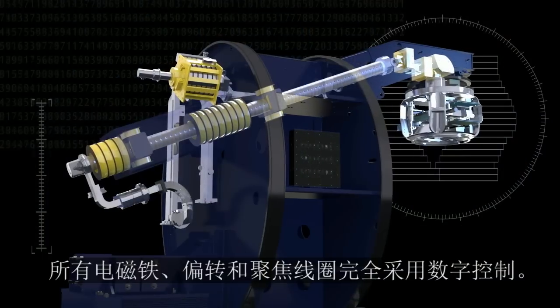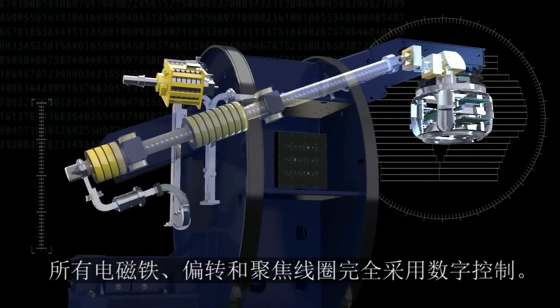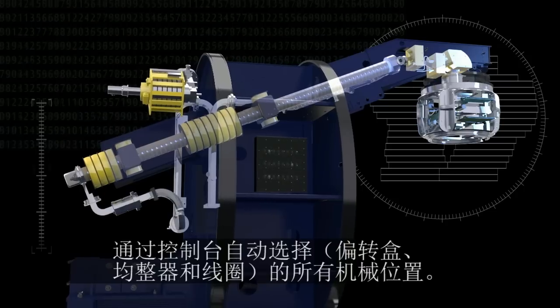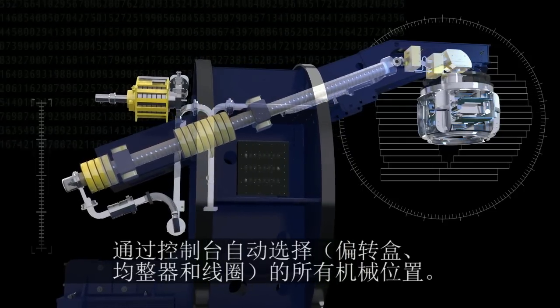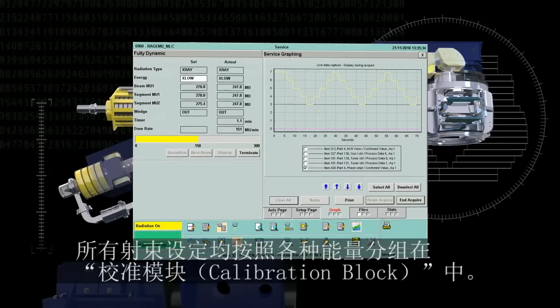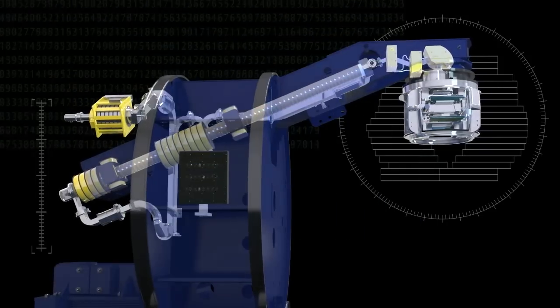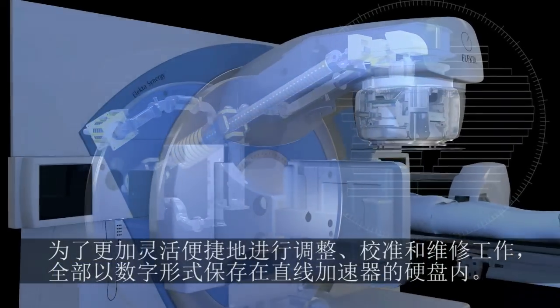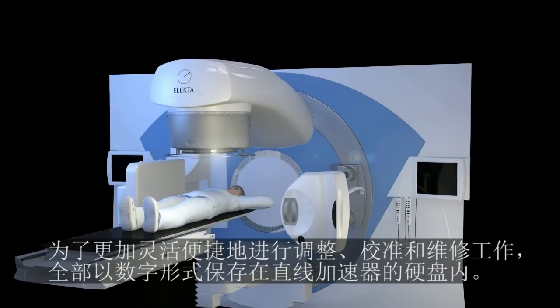All electromagnets, steering, and focusing coils are digitally controlled. All mechanical positions of flight tube filters and foils are automatically selected from the control console. All radiation beam settings are grouped in calibration blocks for each energy. These are stored digitally on the linac hard disk for flexible and easy beam adjustment, calibration, and servicing.